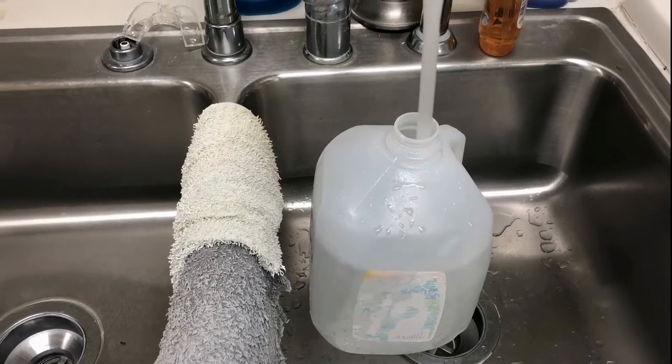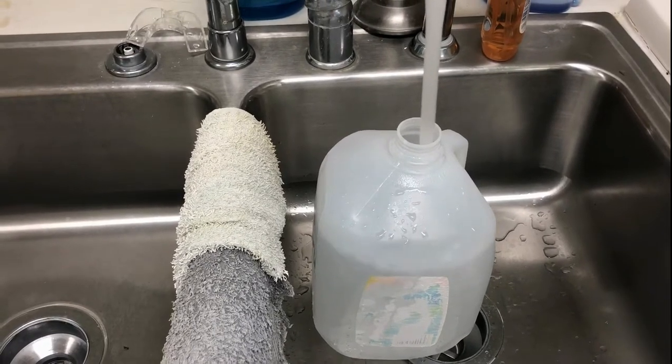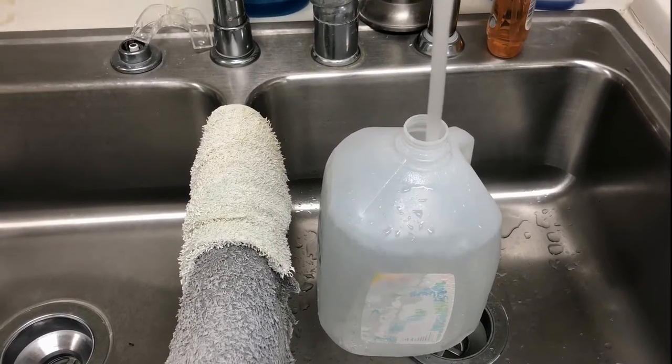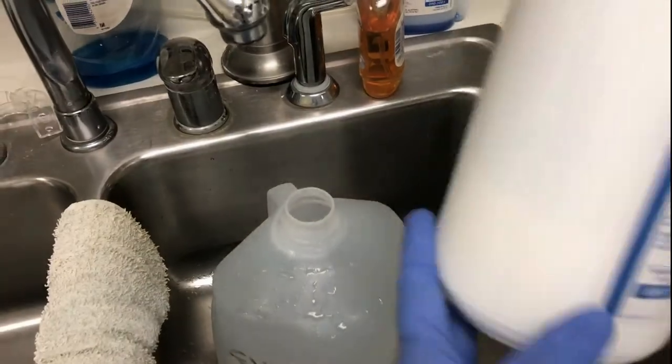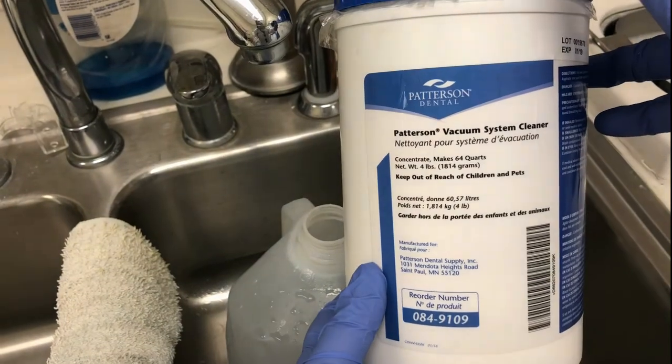Once the disposables and dental instruments have been removed from the treatment area, we can make the evacuation cleaner. Use the manufacturer's recommendations for the proper amount.